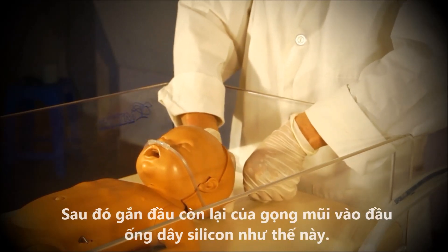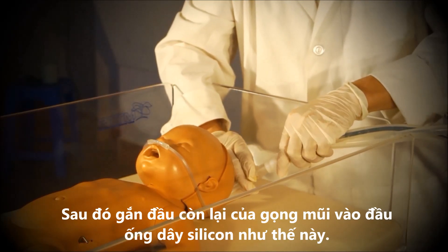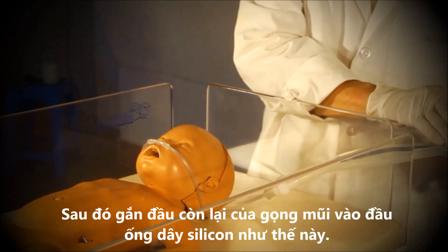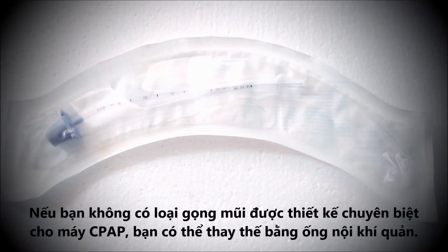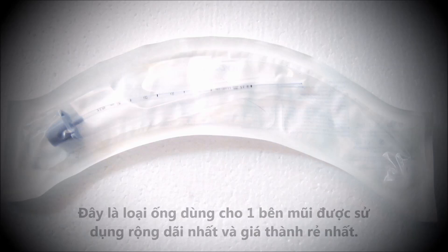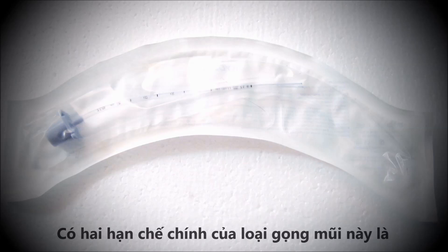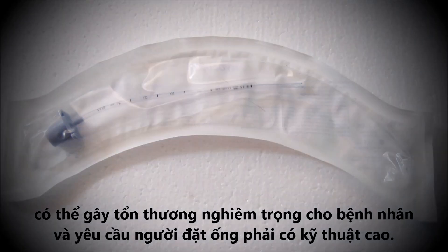Then connect the other side to the patient circuit. If you do not have access to a cannula specifically designed for CPAP, you can use an ET tube instead. This type of single nasal interface is widely available and inexpensive. There are drawbacks to this solution, including possible trauma to the patient and the need for a high level of skill to insert the cannula.